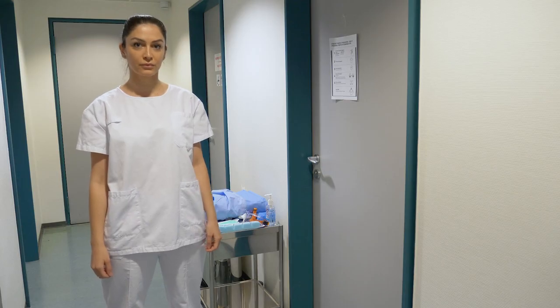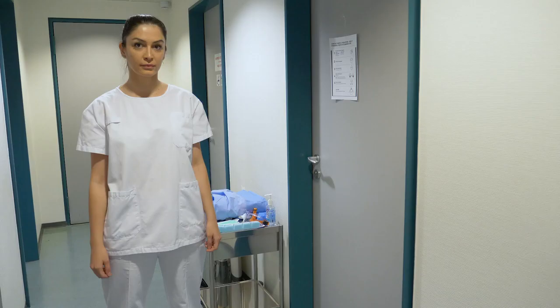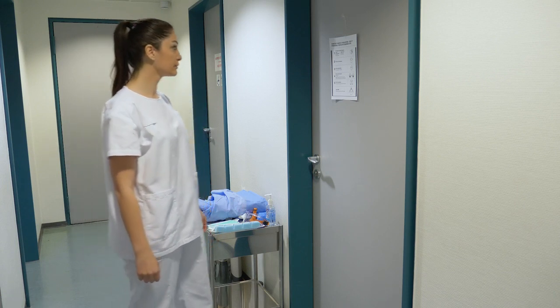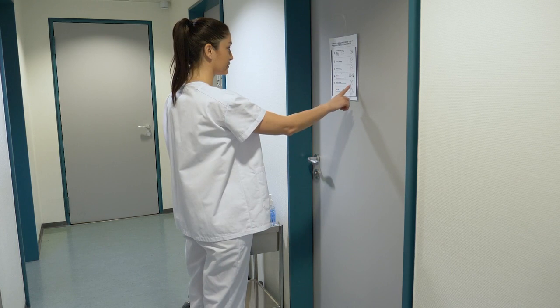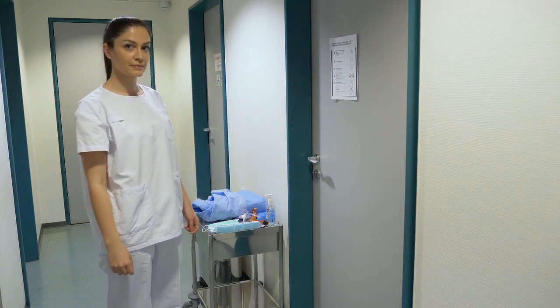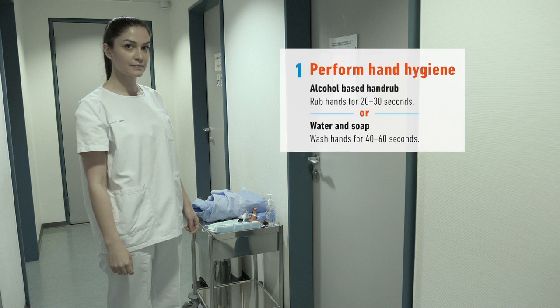To begin, ensure you remove all jewelry and personal items and that your hair is tied back if applicable. Make sure you consider the risk involved in the care you are going to provide to the patient to ensure you are using the appropriate PPE for the precautions needed. Step 1 is to perform hand hygiene.